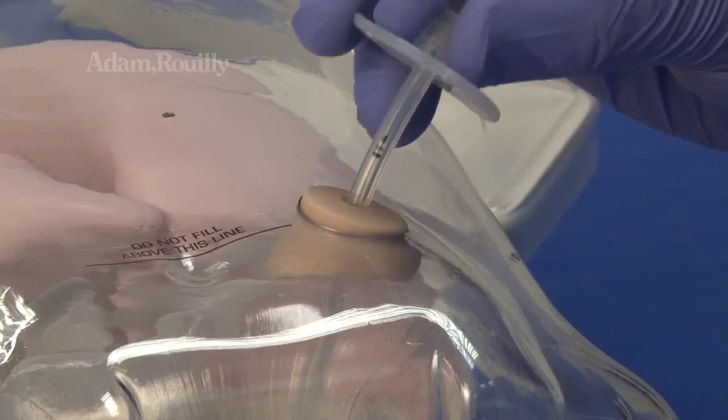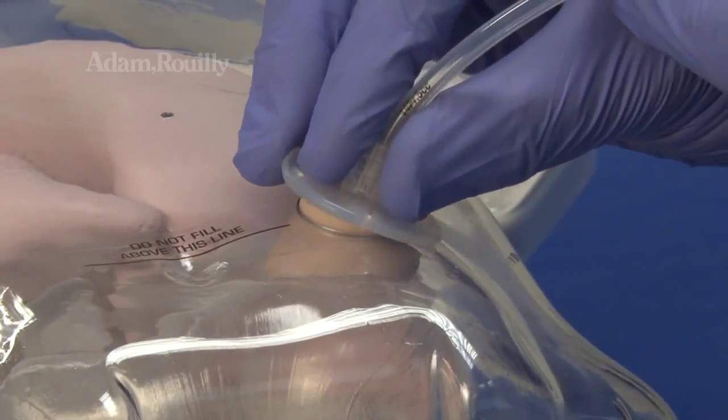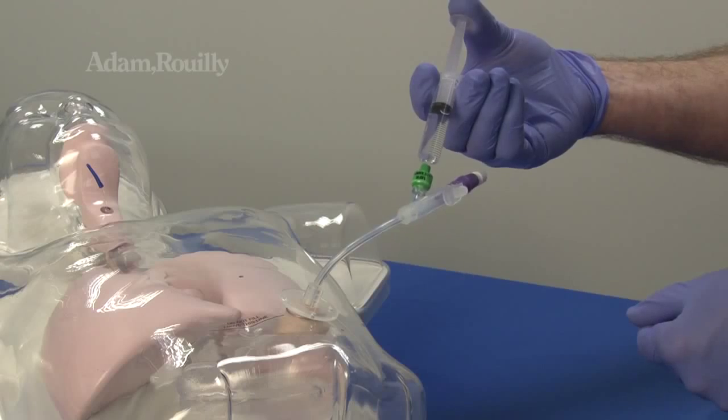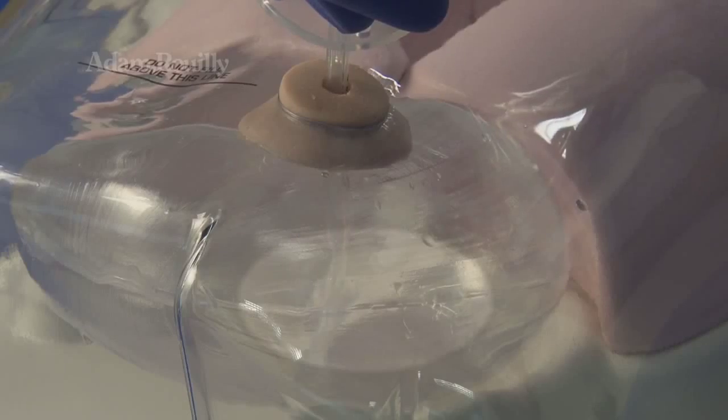Insertion of gastrostomy devices, inflation of gastrostomy device balloon, and administering via gastrostomy is also possible.